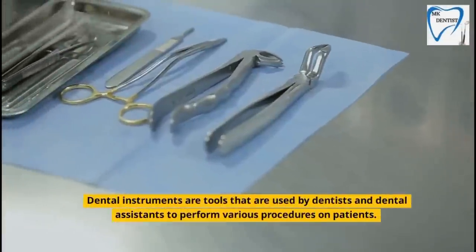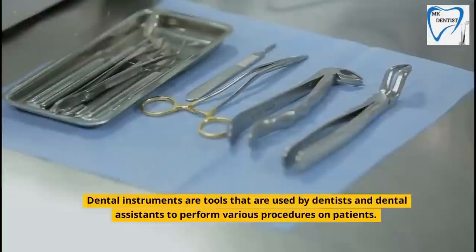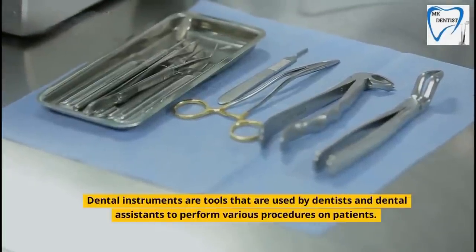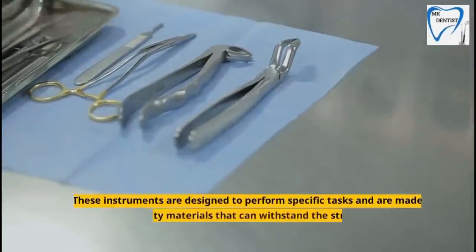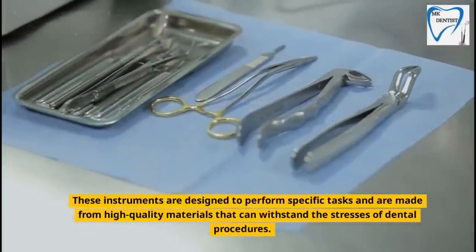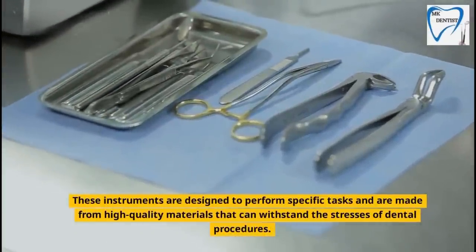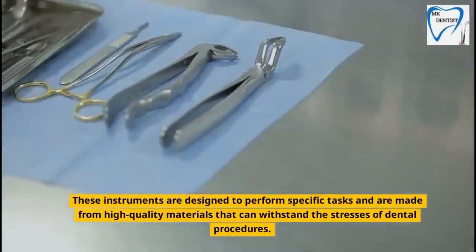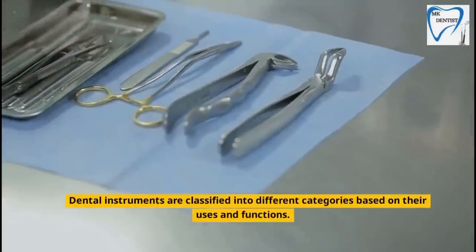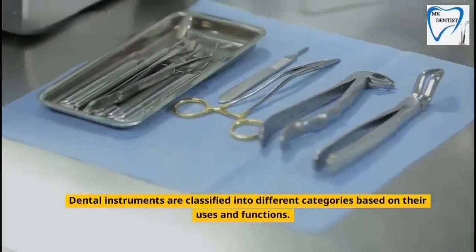Dental instruments are tools that are used by dentists and dental assistants to perform various procedures on patients. These instruments are designed to perform specific tasks and are made from high-quality materials that can withstand the stresses of dental procedures. Dental instruments are classified into different categories based on their uses and functions.